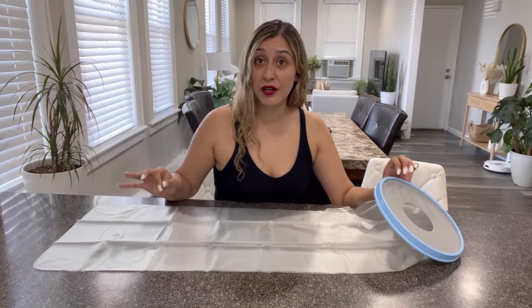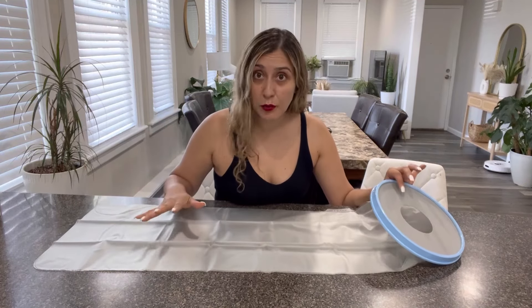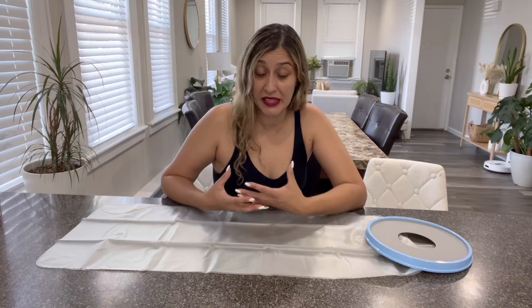With this amazing product, you won't get a drop of water inside. It is completely waterproof and made with medical grade type of materials. It is odorless, it is latex-free, which is great for people that have allergies to latex. And it is also skin-friendly overall.